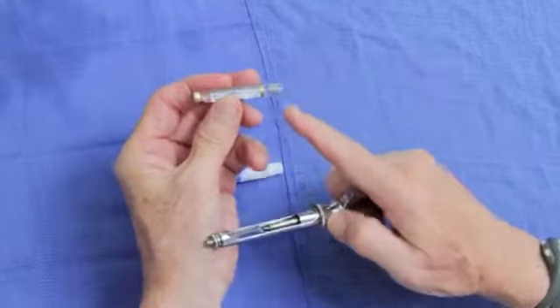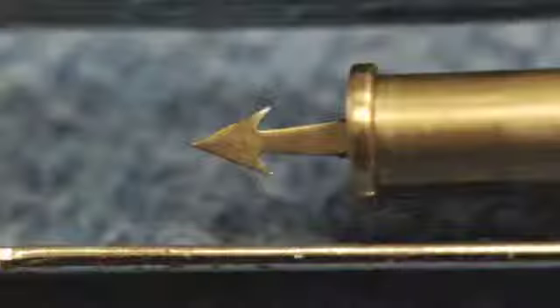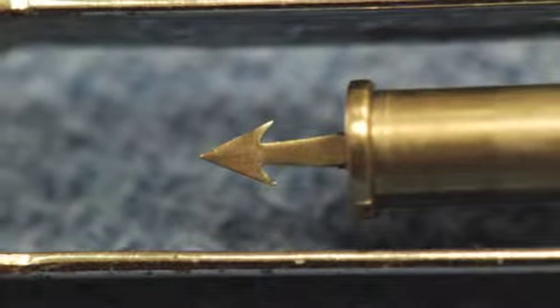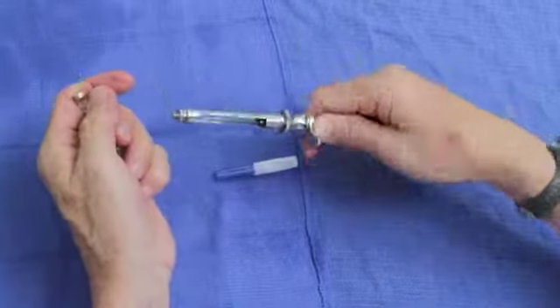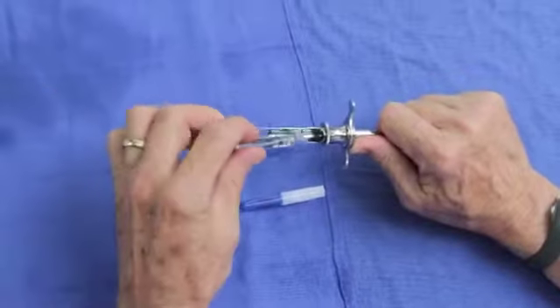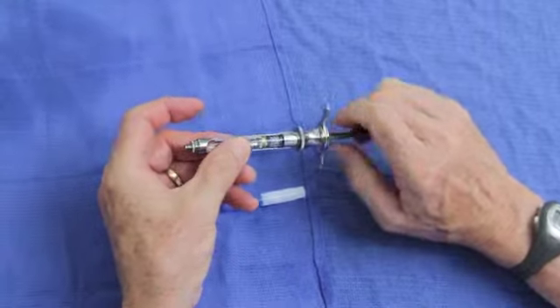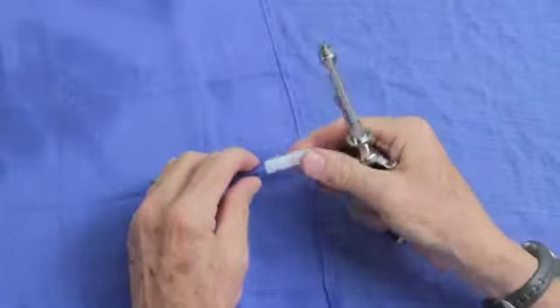As you install the carpule into the syringe, notice the plunger, because it will need to match with the harpoon. Push the piston back, creating space for the carpule to fit into the syringe. Then squeeze in order to secure the harpoon into the plunger. Check to make sure that it's tight.